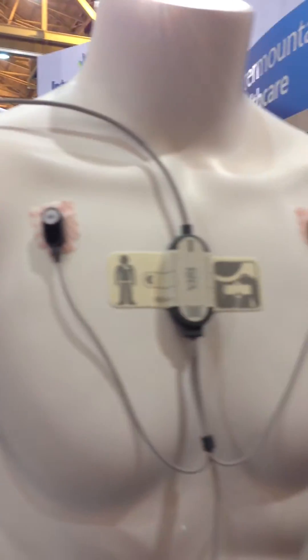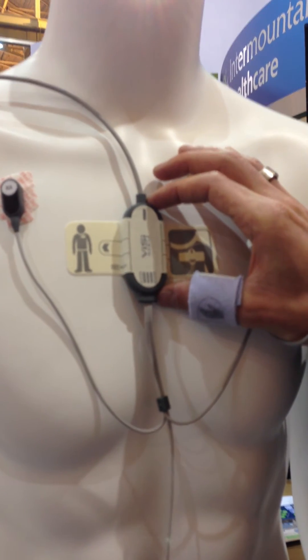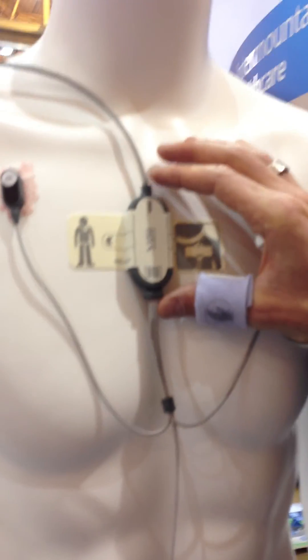The other sensor goes from the arm up to the chest of the patient. That's a fully digitized ECG front end for ECG heart rate and respiration. We have a three-lead and a five-lead version. We also have accelerometers to capture the activity and posture of the patient. Between those two sensors, you get all five vital signs plus activity and posture. Thank you so much.